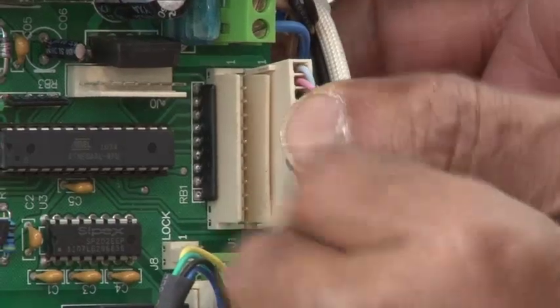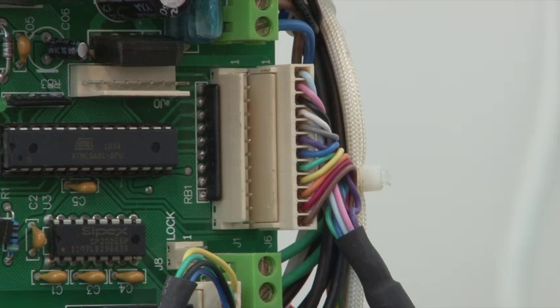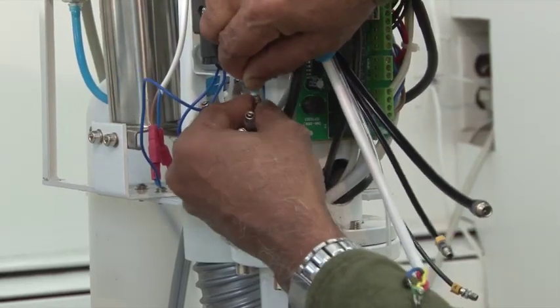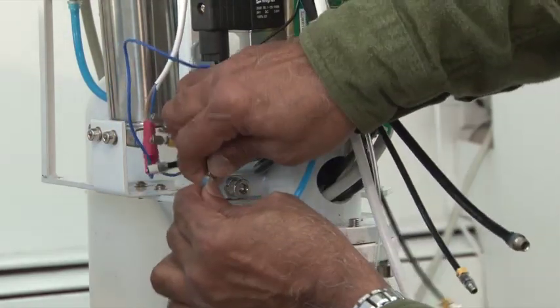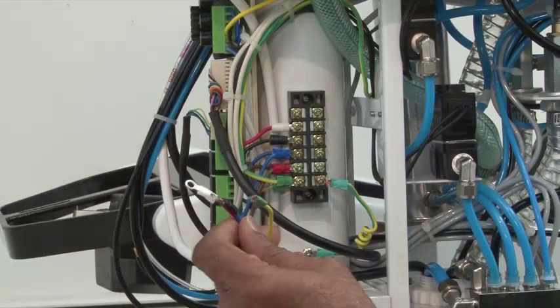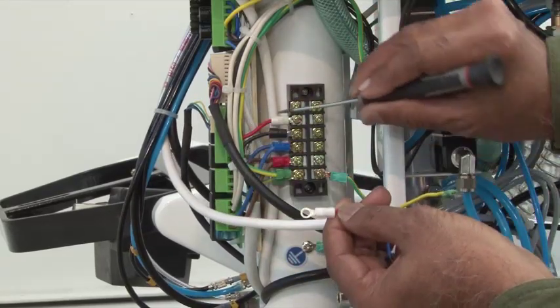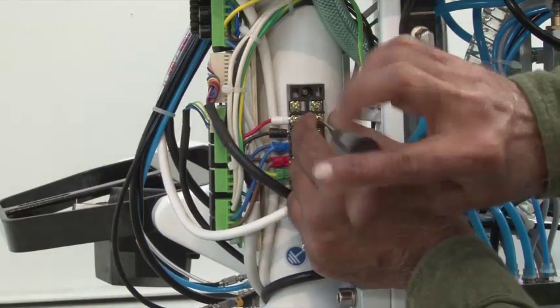First connect the chair control wires which connect to the main circuit board. Should you need to connect the assistant's touchpad control, you may connect that to the next available slot. Connect the number-coded tubing from the delivery tray to the corresponding tubing in the delivery box. Then connect the low voltage wires from the delivery tray to the corresponding connector.